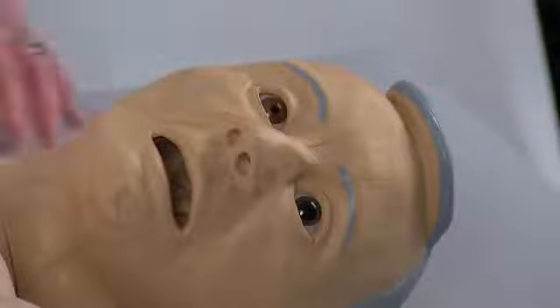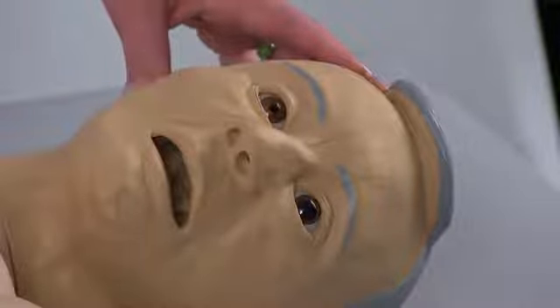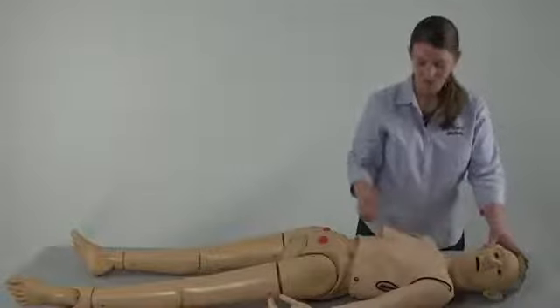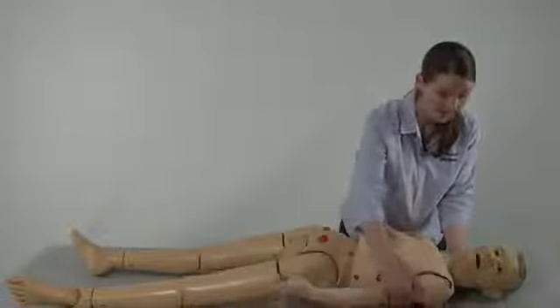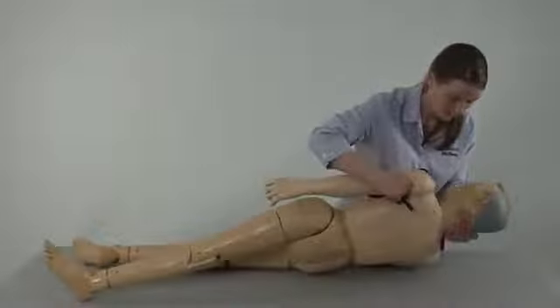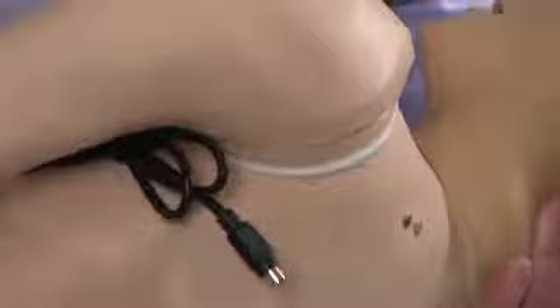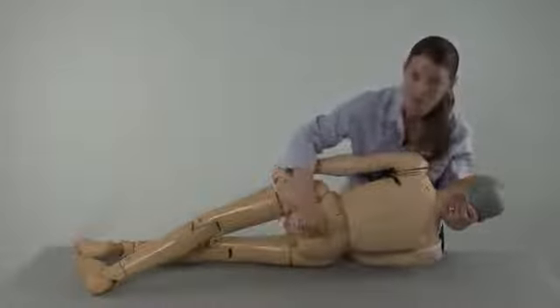All versions of the elderly appearing Jerry or young appearing Carrie have several visual inspection features: a constricted and dilated eye, a reddened skin fold under the breast, and on the back a cancerous mole, a non-cancerous mole, as well as a stage 1 decubitus ulcer.